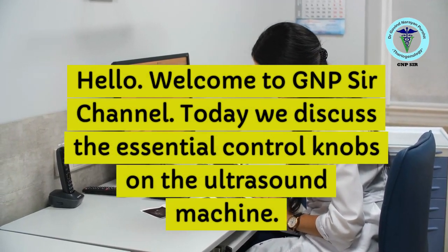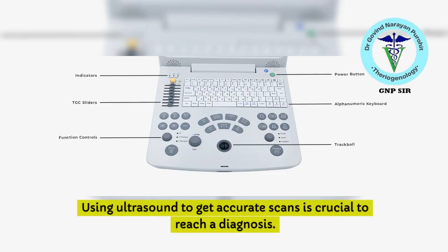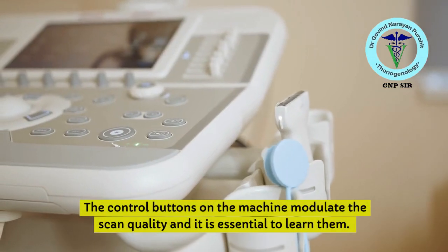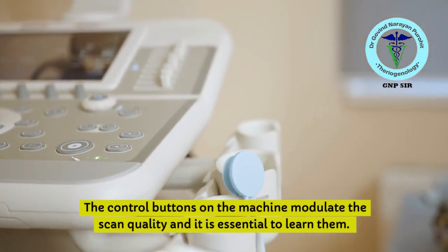Today we discuss the essential control knobs on the ultrasound machine. Using ultrasound to get accurate scans is crucial to reach a diagnosis. The control buttons on the machine modulate the scan quality and it is essential to learn them.